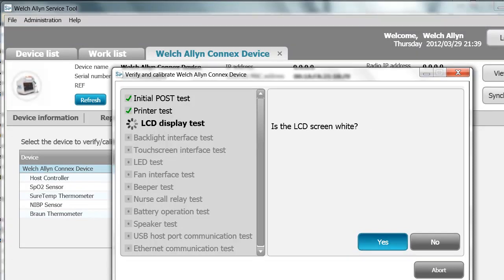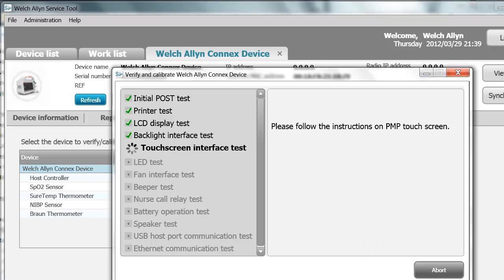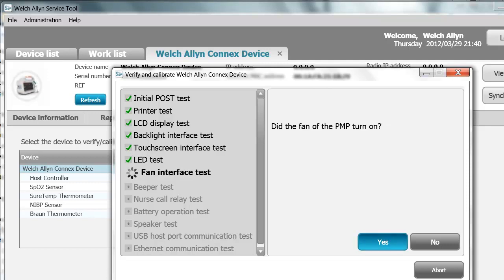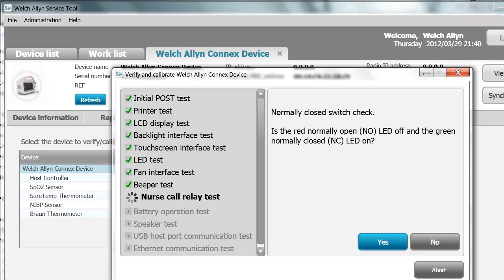In the LCD test, it tests the complete LCD — look at the device and follow the corresponding prompts. For the touch screen test, you must touch the screen as requested. For the LED test, you will check the LED light bar on the device. You must check the device as requested and answer the prompts. You will test the beeper and then the nurse call if your device has nurse call, using the proper tools. Follow the prompts.